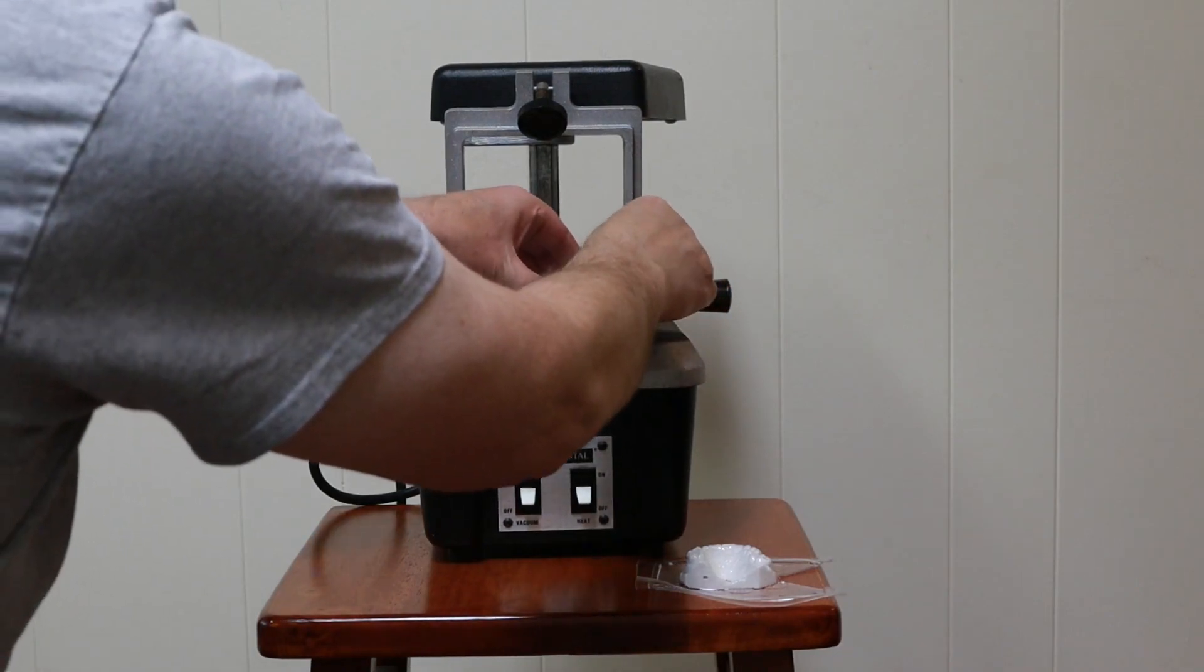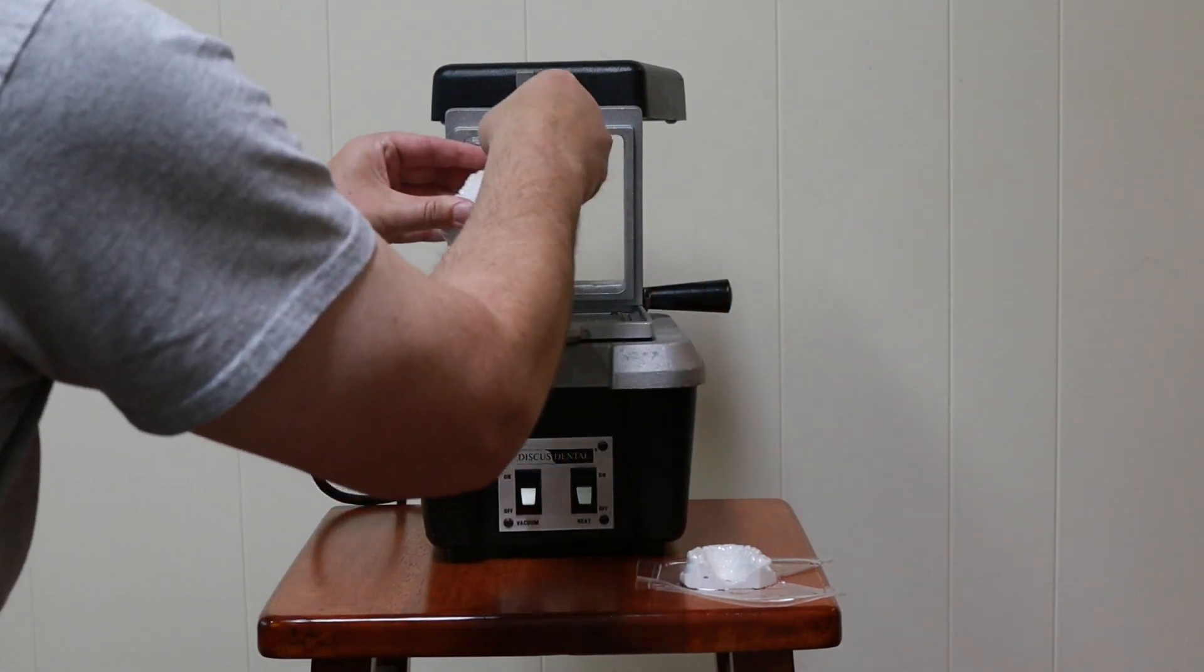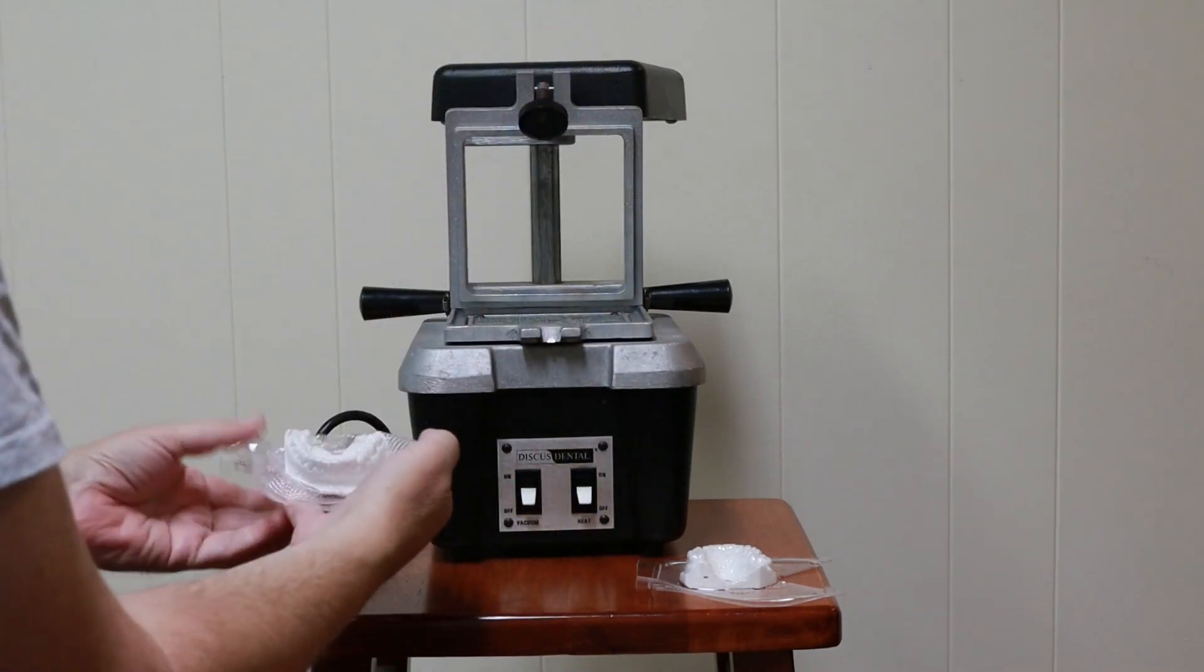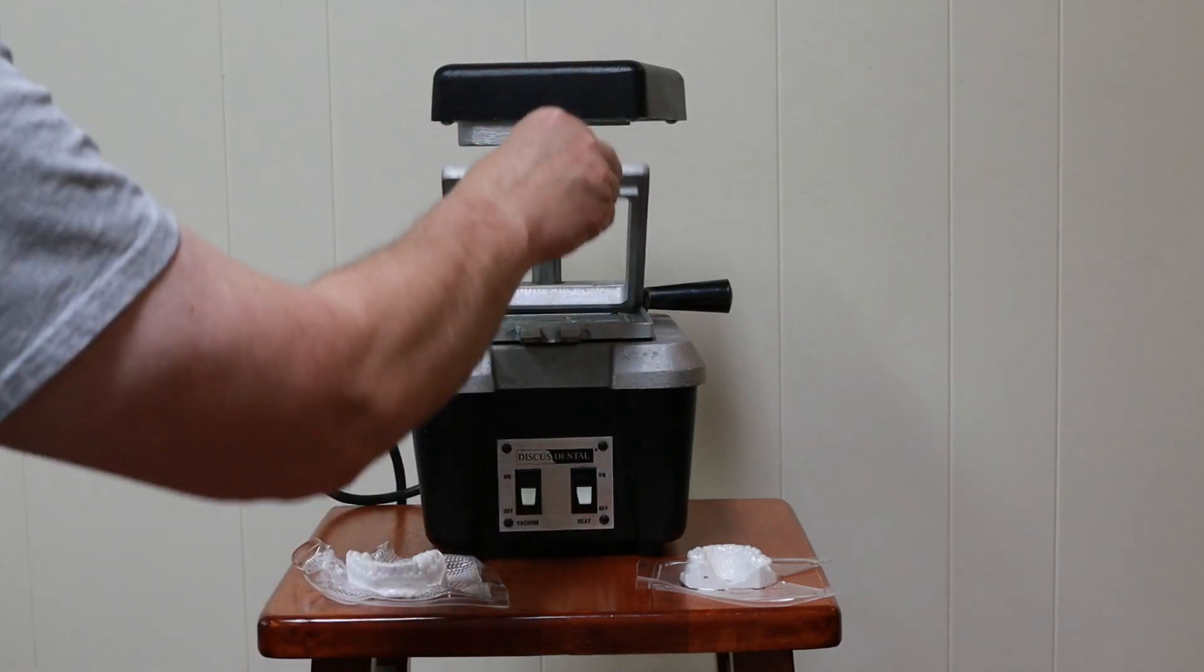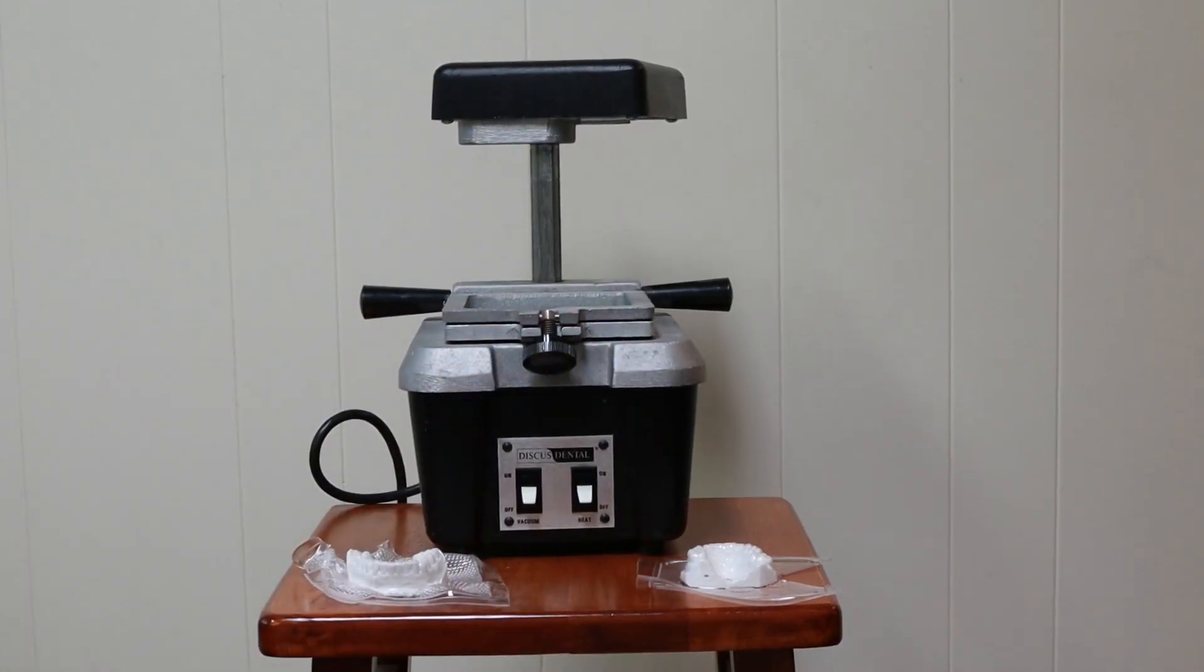Let's peel it out of there. Now we'll just put this aside, let it cool. And we'll trim off the excess and remove it from the model.